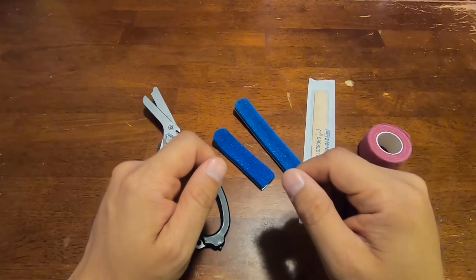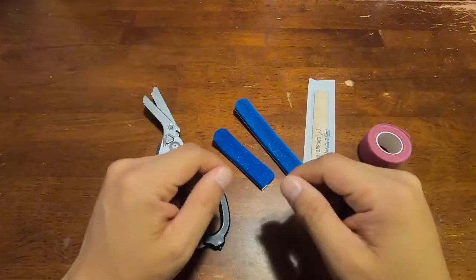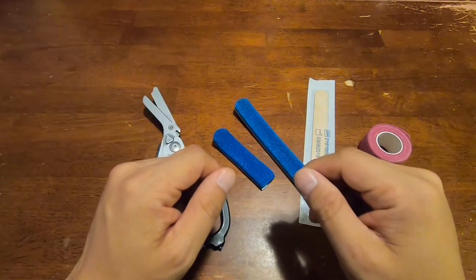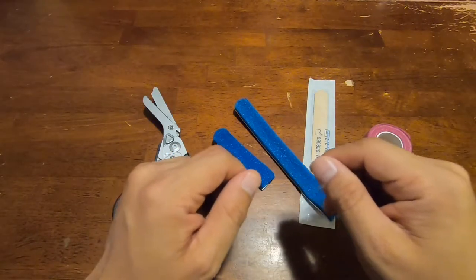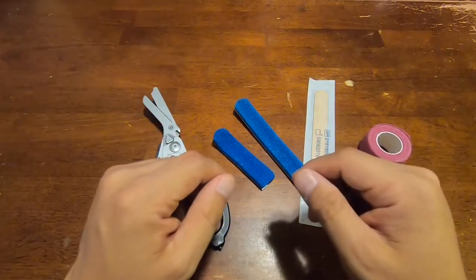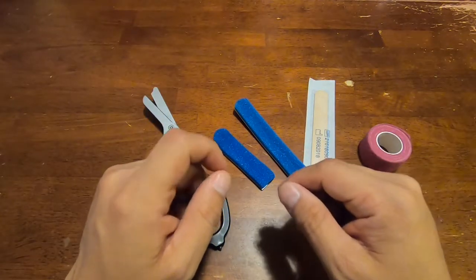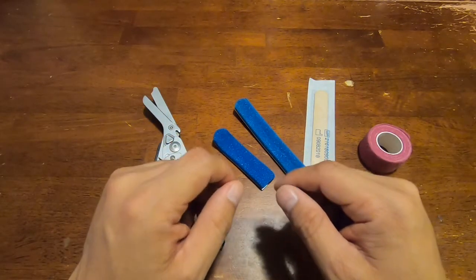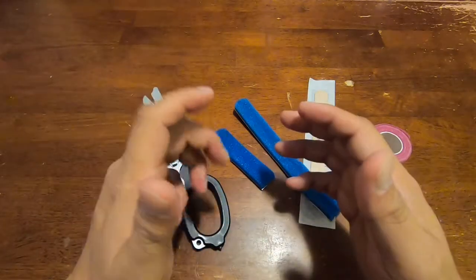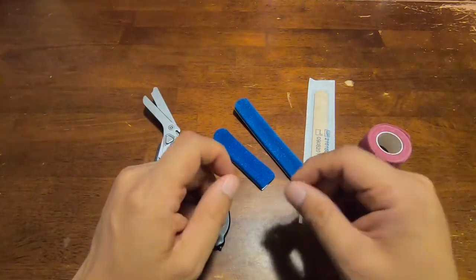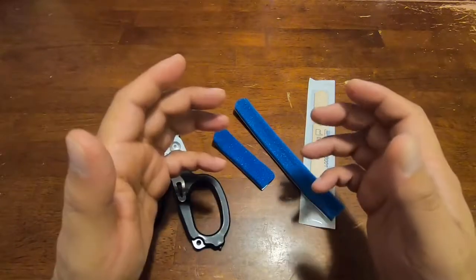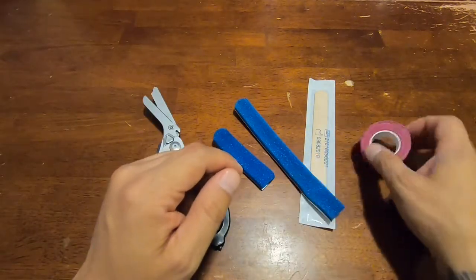Hello everybody, just wanted to throw out a quick video on how to build a better finger splint that's more effective and more comfortable for use. I do want to point out the necessary supplies, and these supplies are accessible at your local pharmacy or through an online first aid store.